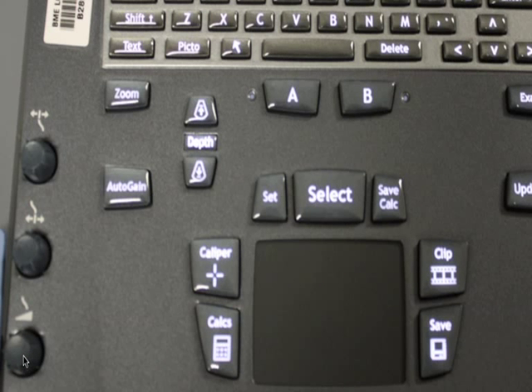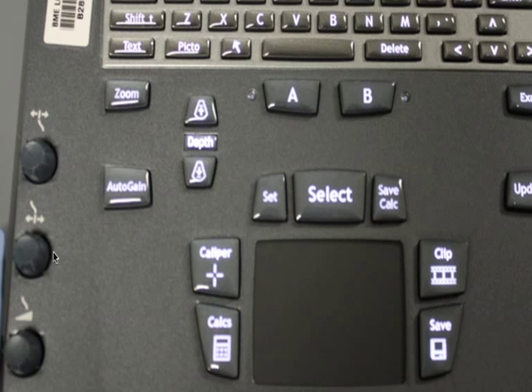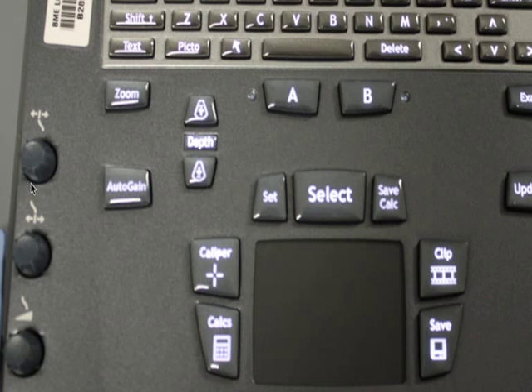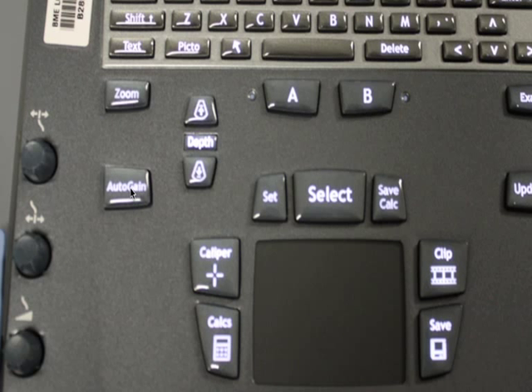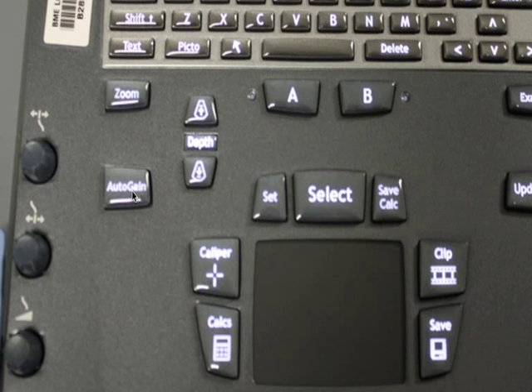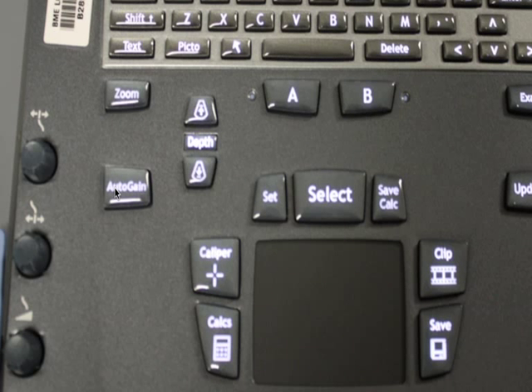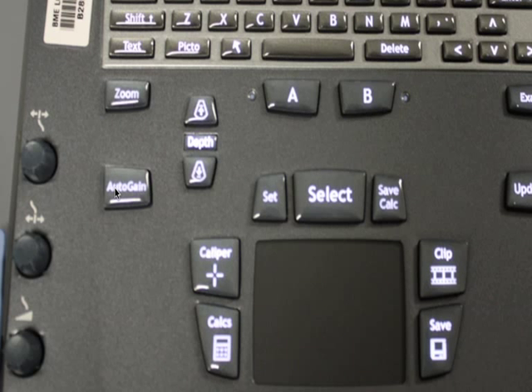In general, the overall gain dial will be the one you'll use most. However, as your eye improves and you recognize that gain problems may be regionalized to the upper or lower half of the screen, the near-field and far-field gain dials will be more helpful. The auto-gain button, while encouraging the system to select the appropriate gain for you, is not a generally helpful tool, and I don't encourage you to use it or rely on it.